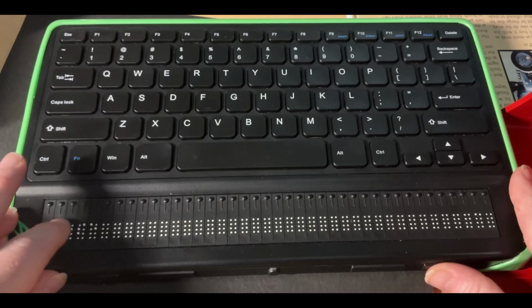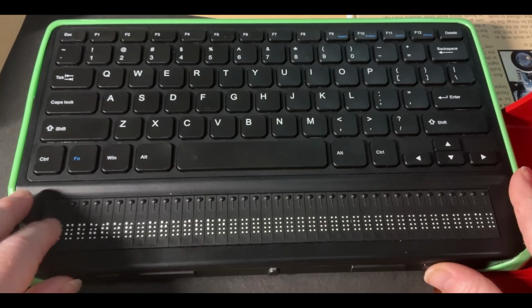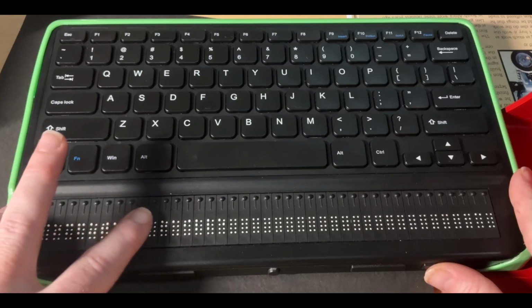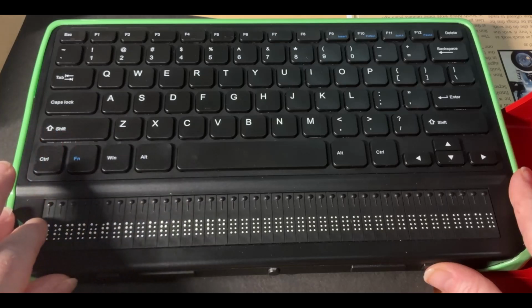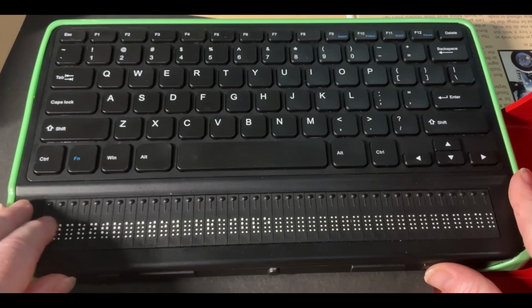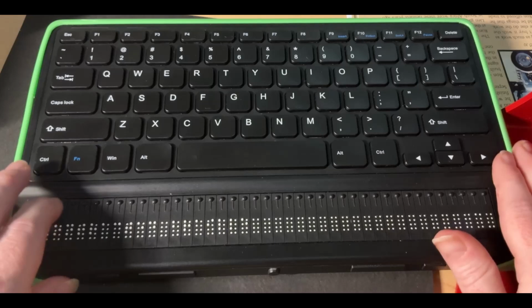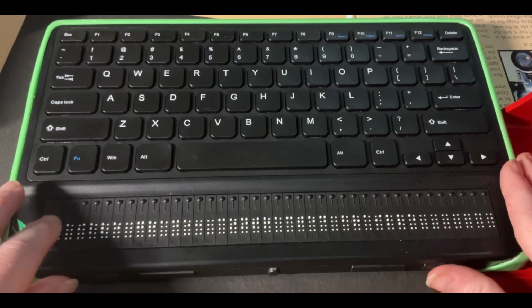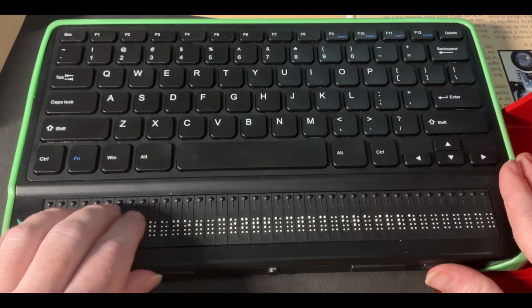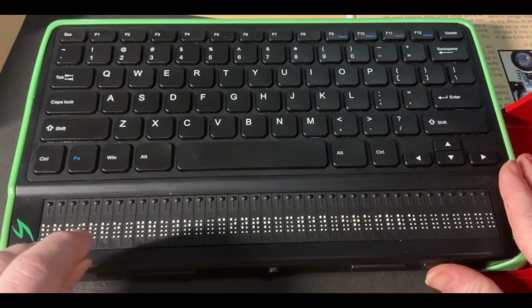If I press the thumb key again, it'll say close. If I press my thumb key again, it'll say computer Braille. And if I press my thumb key again, it will say uncontracted. We're right back to where we started. But I want contracted. So I'm going to press a next thumb key followed by enter or cursor routing key. Now it says on my display, Braille grade contracted. Confirm. Good. That's what I want.